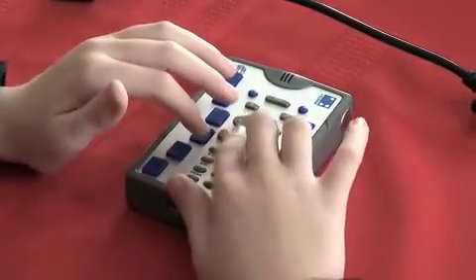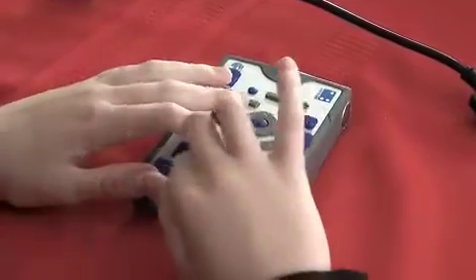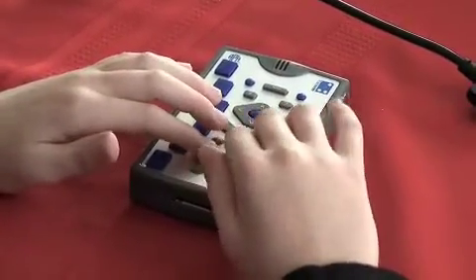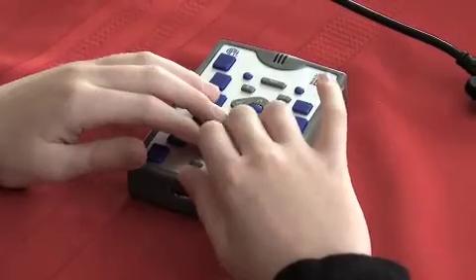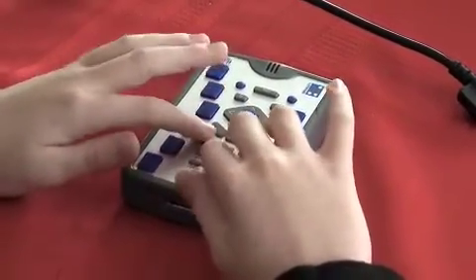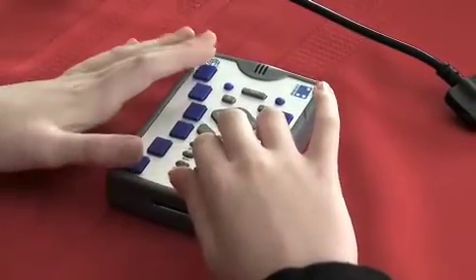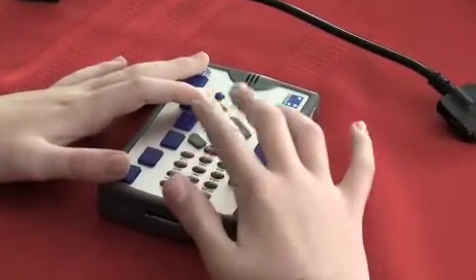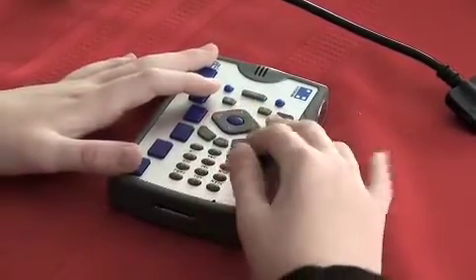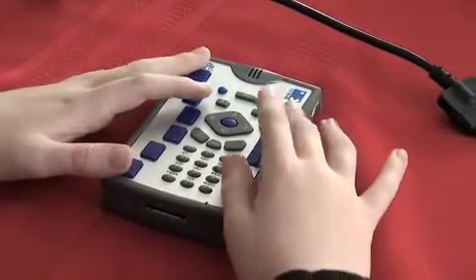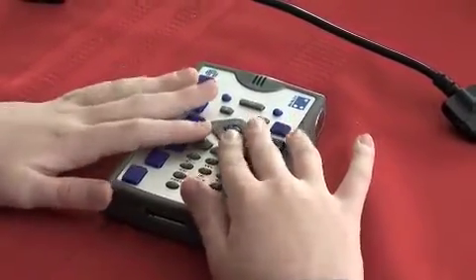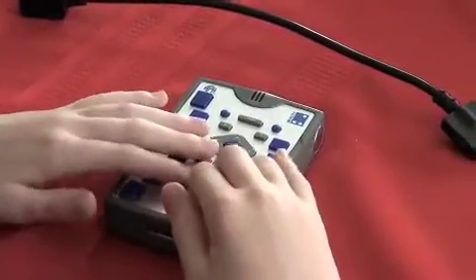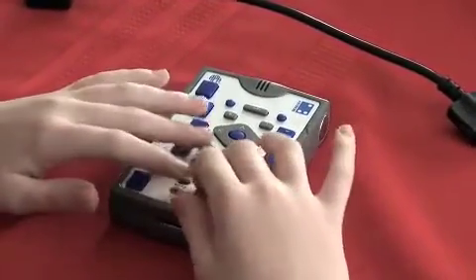Below OK, menu, and Cancel is the Telephone keypad. This can be useful if you're typing in Thumb Braille, if you're texting things in, or if you're dialing up programs. For example, if I wanted to open the music player, I could simply press 2 because that's the number that's listed in the application menu, and it opens that program. So I can press Cancel to get out of it. The Telephone keypad is a very useful part of your device.